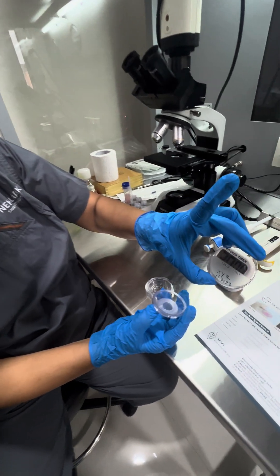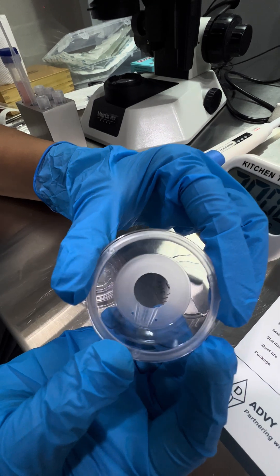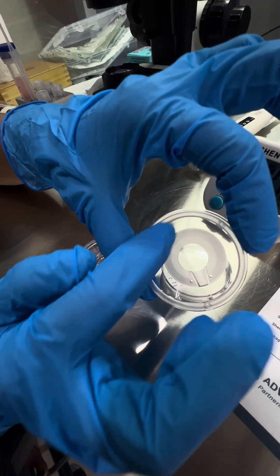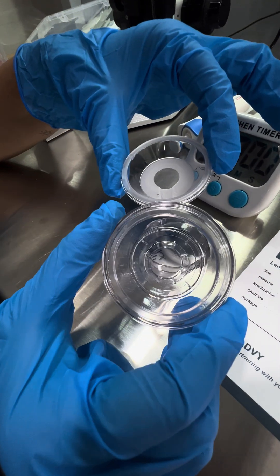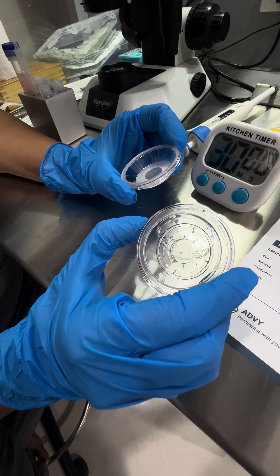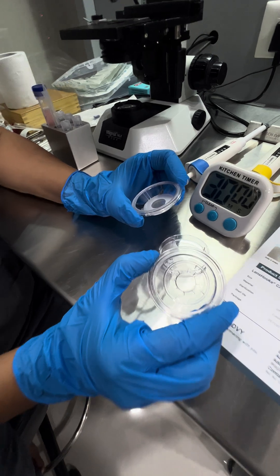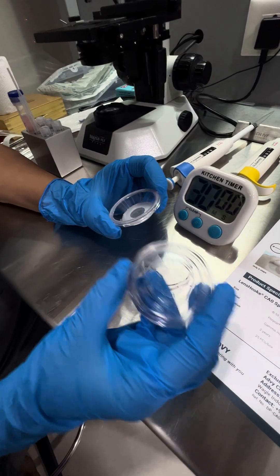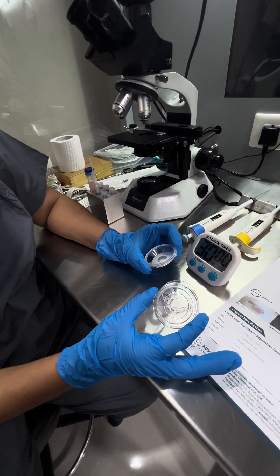This is the cap, this is the filter which is used. The center portion is the filter and the semen is below this. This plate is designed to mimic normal uterus physiology — the flow where sperm travel. So they say this plate is designed like that, and it actually works as a microfluidics plate.